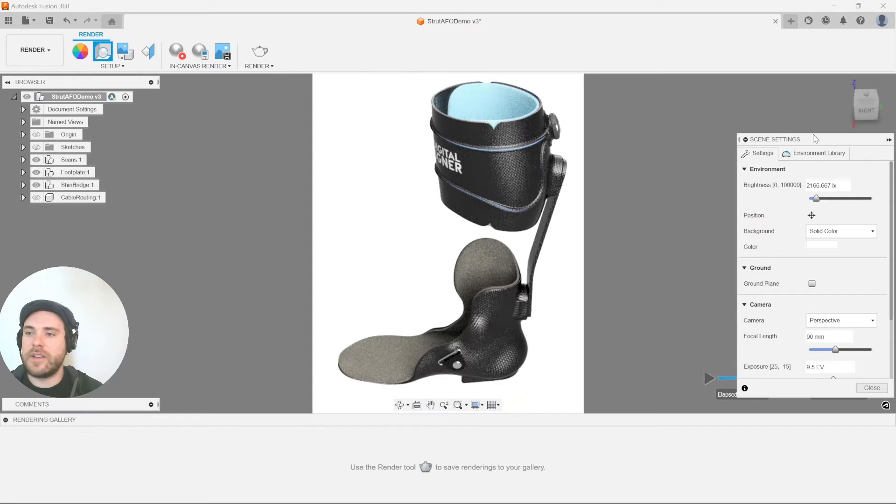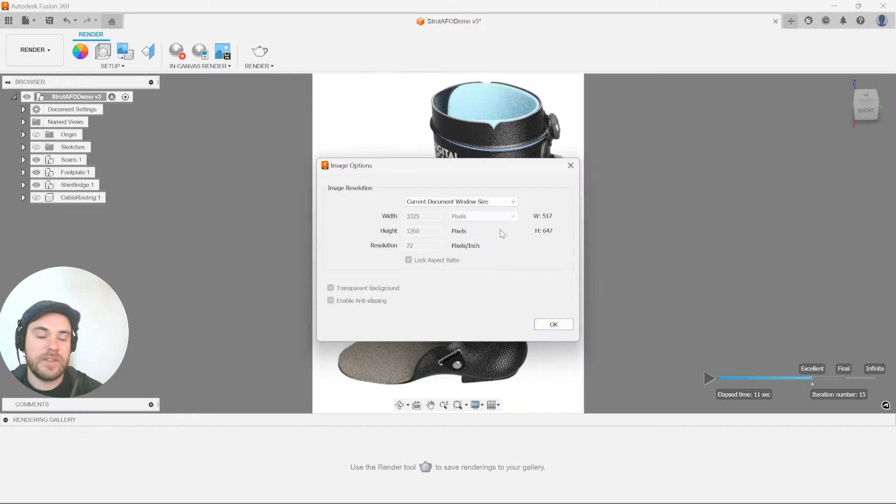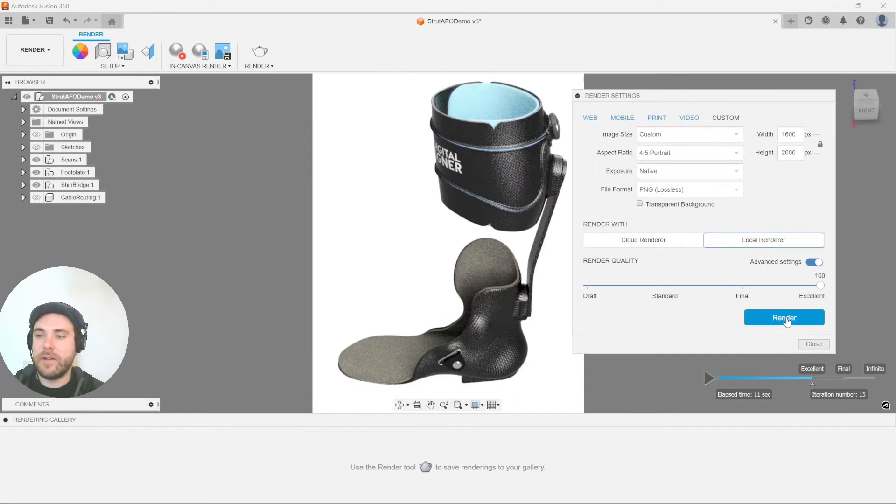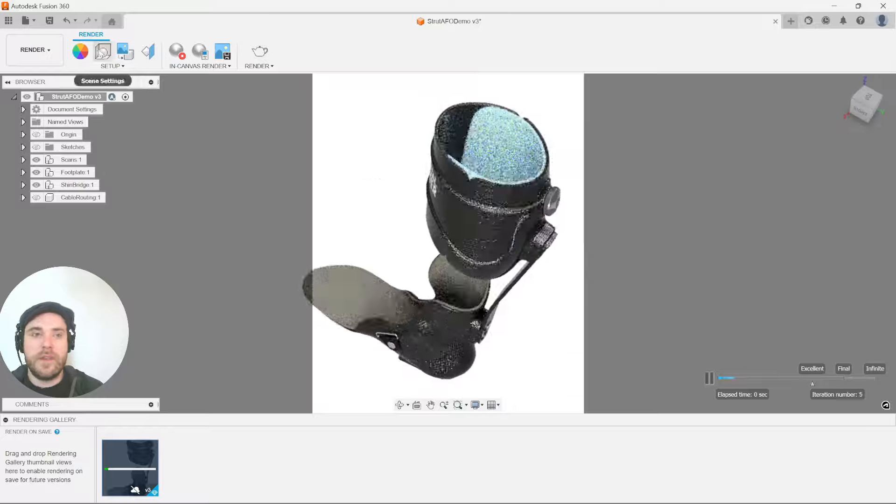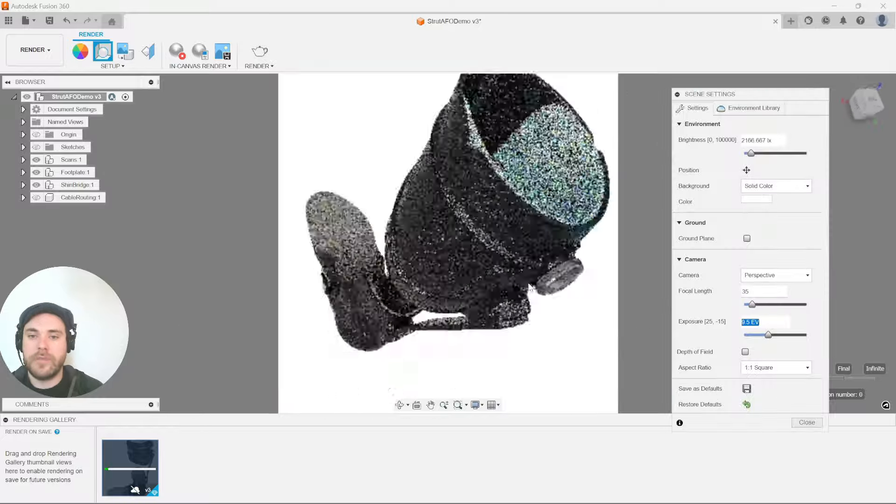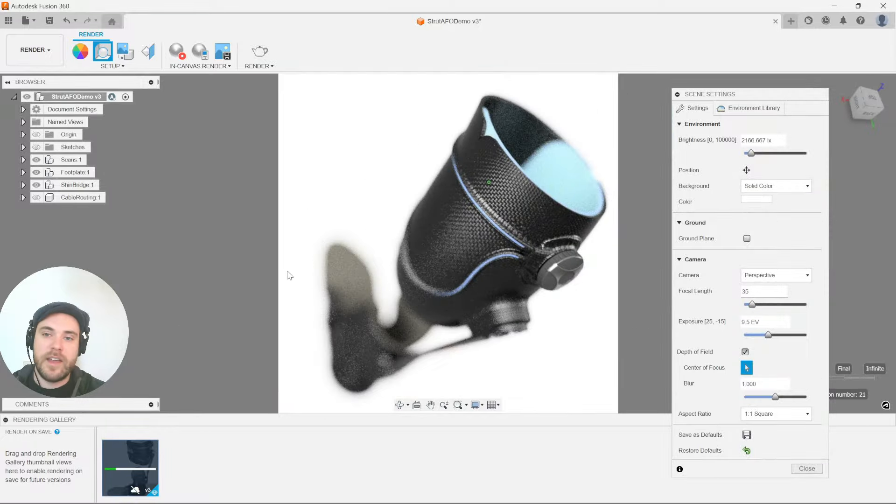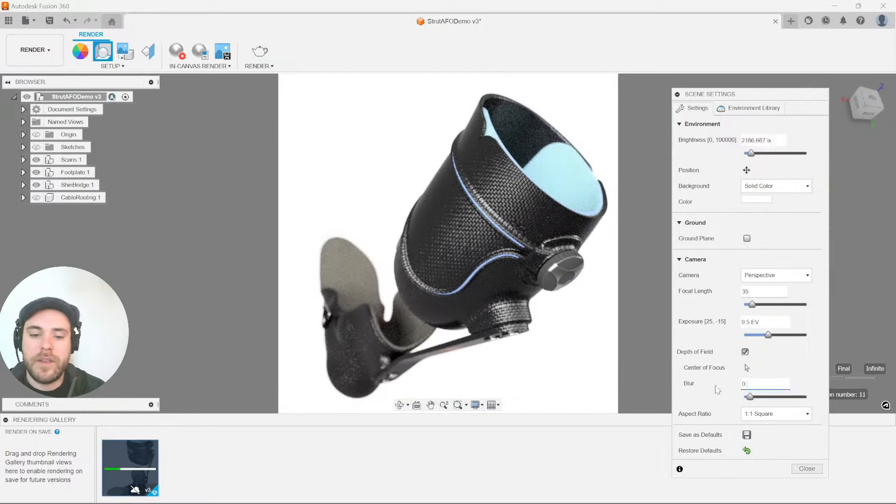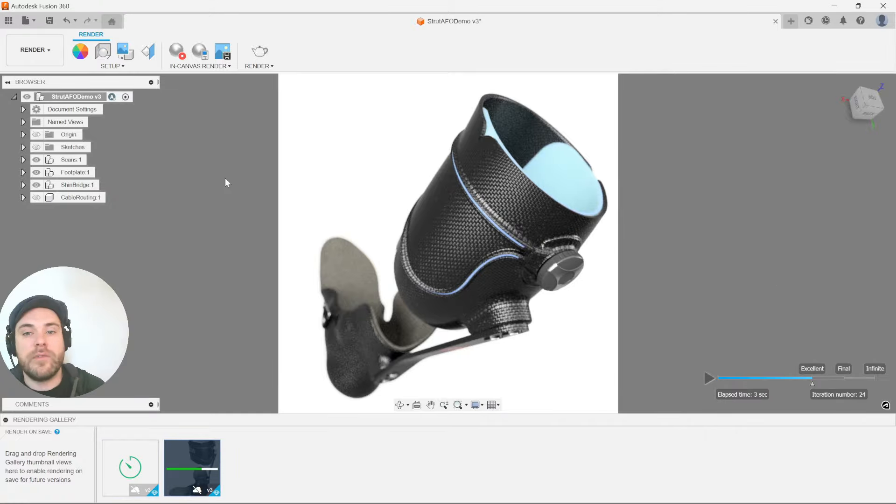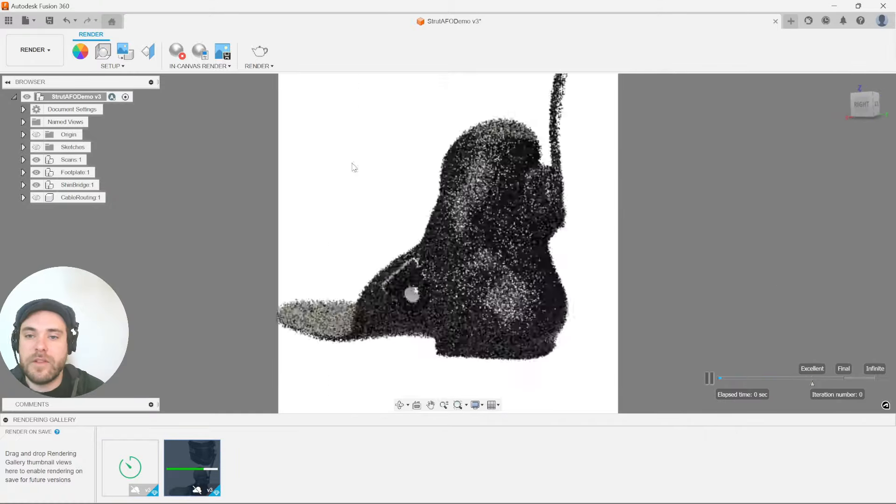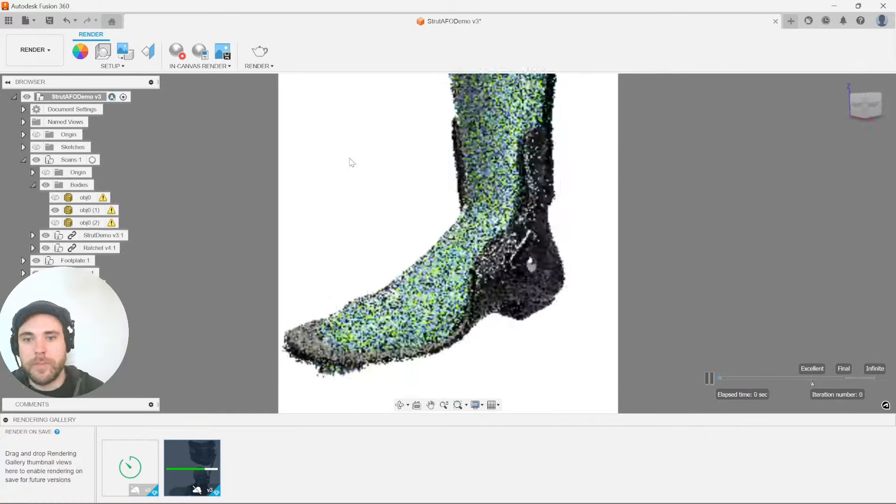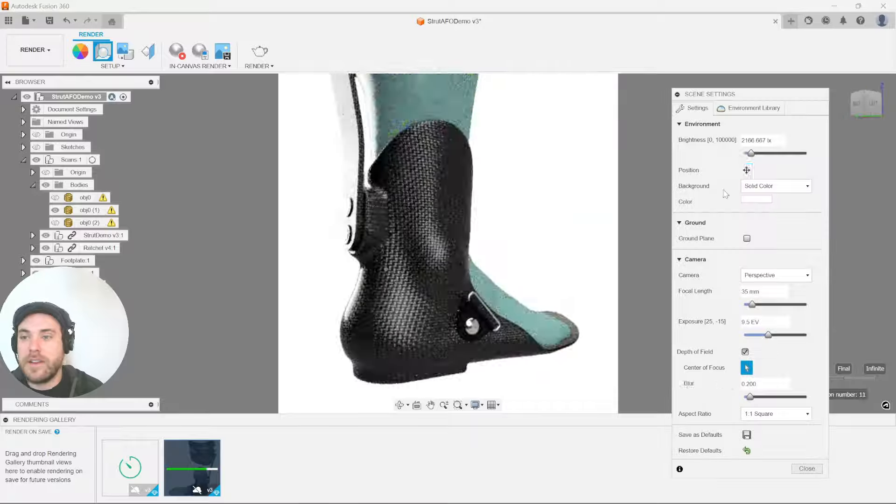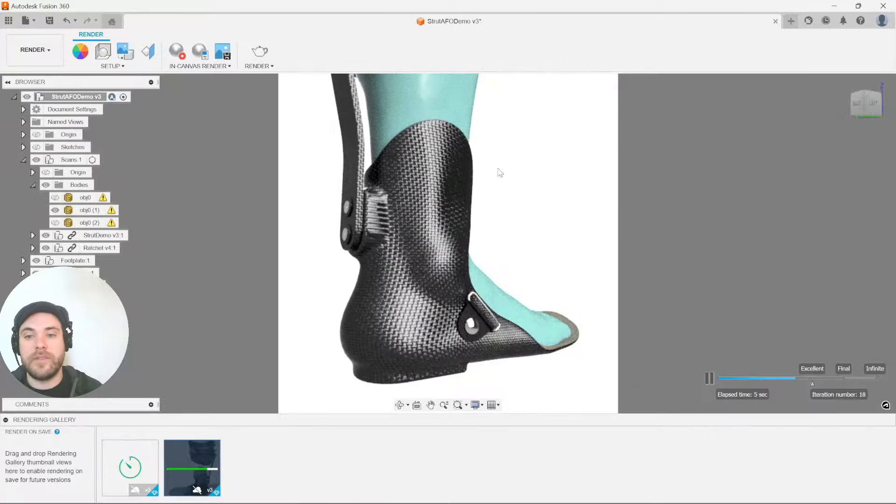By the end of this course you will have everything you need to be able to make a traditional Fabtech strut styled AFO device following our consistent and unified design methodology so you're learning the same way the right way the first time and only one method for all variety of applications we teach.